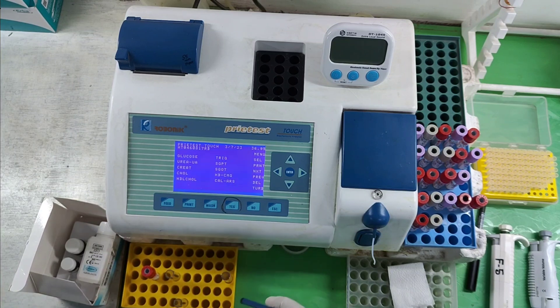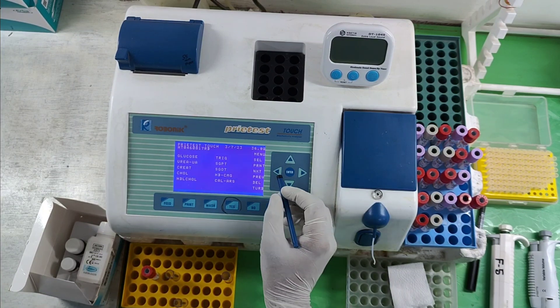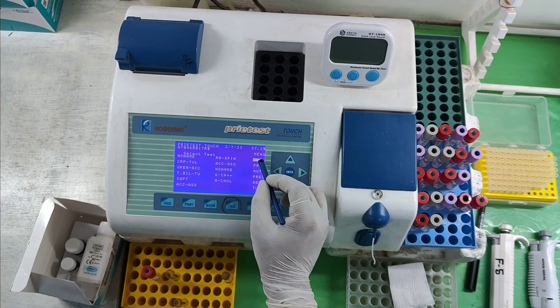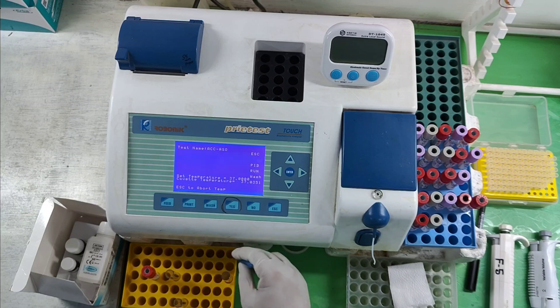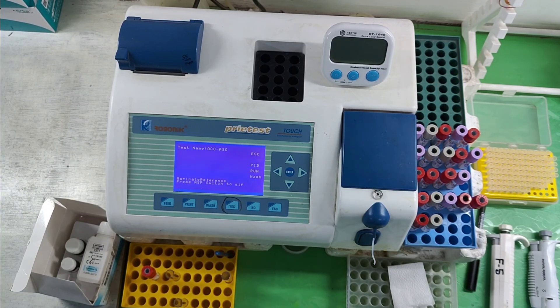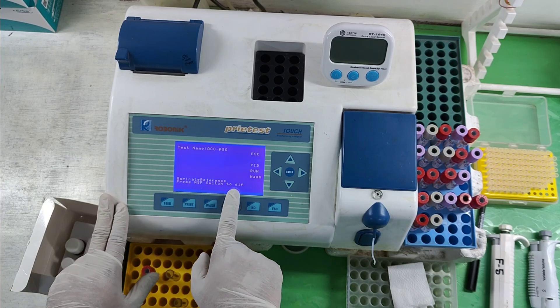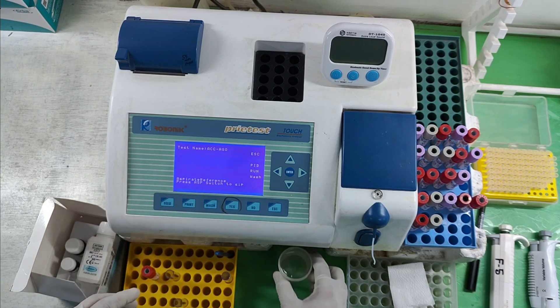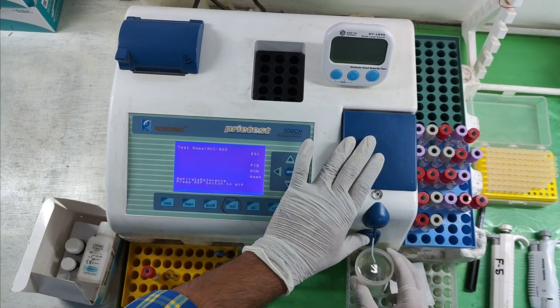Now I am going to set the machine for ASO titer estimation. Select and run — let the machine be ready. When the machine shows 'aspirate reference,' we have to aspirate distilled or deionized water into the machine.